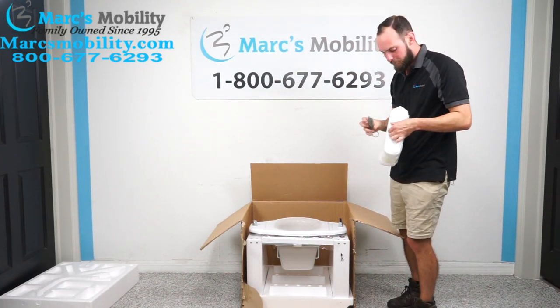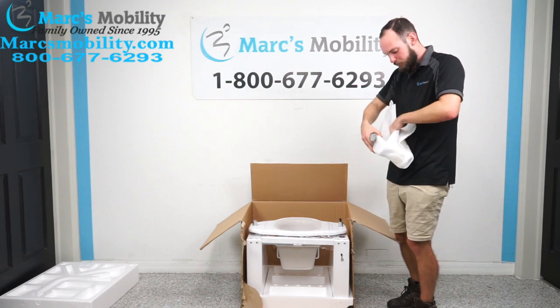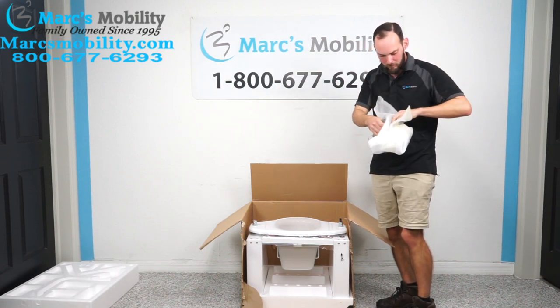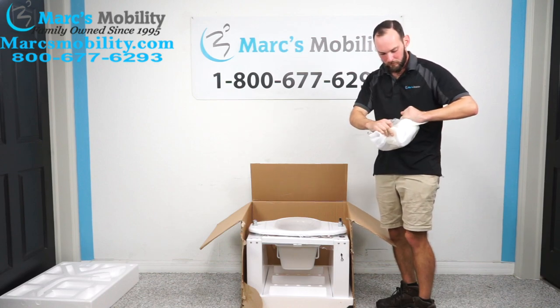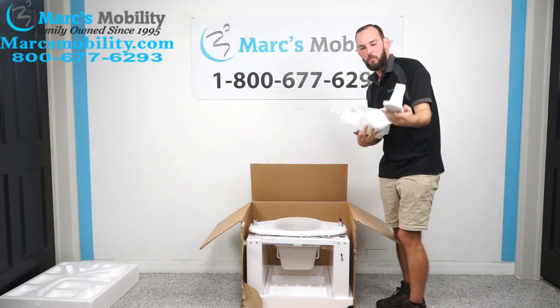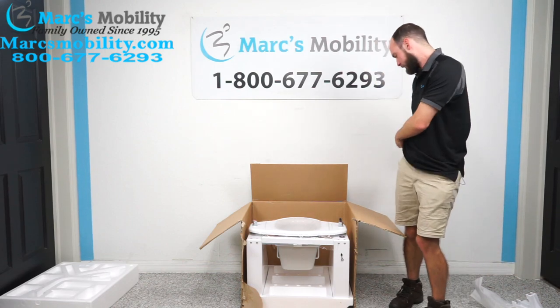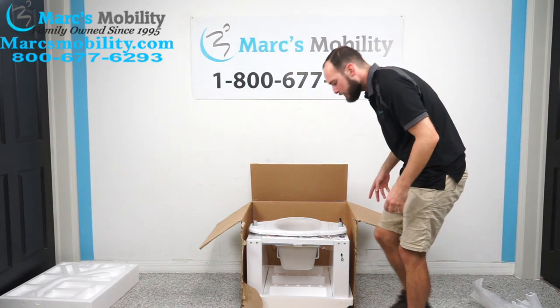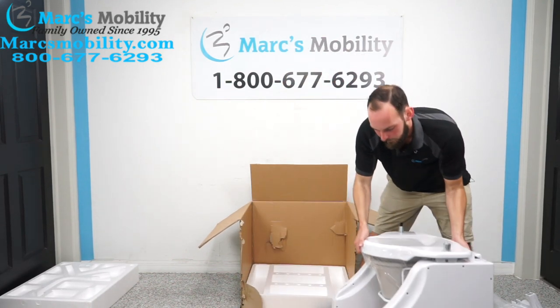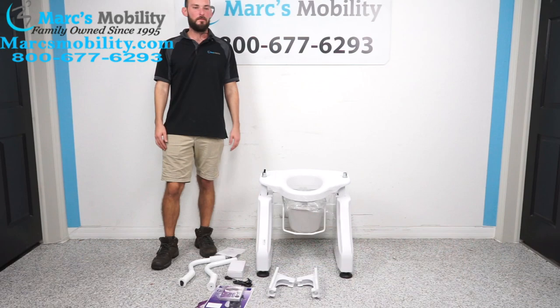I'm not sure what this is but we can open it up. Some more mounting brackets — I'm going to set these to the side. It looks pretty straightforward; I think I can just lift this out of the foam. Then I'm going to take a few minutes and clean up and we'll be right back.